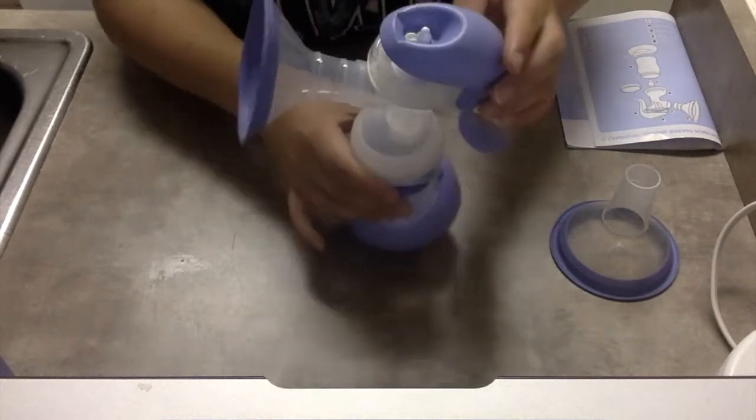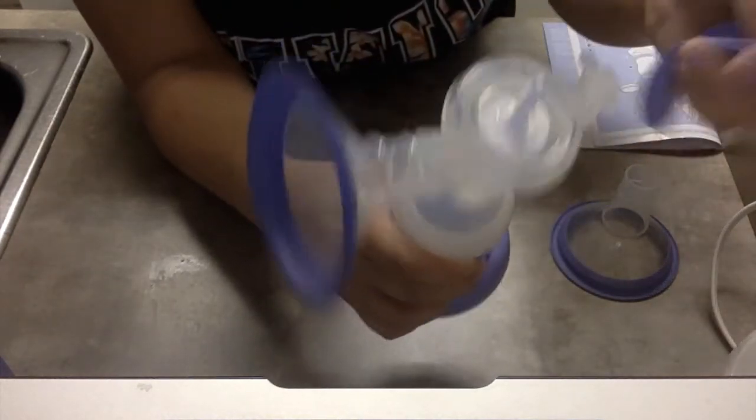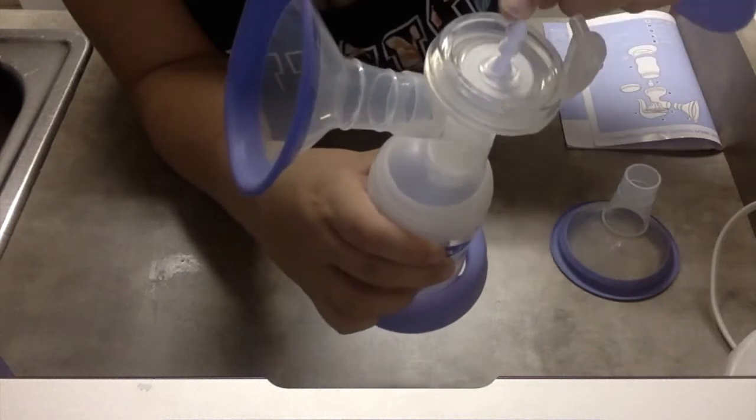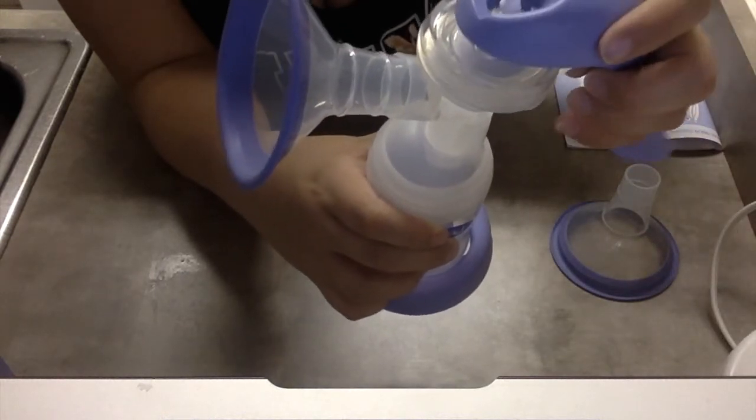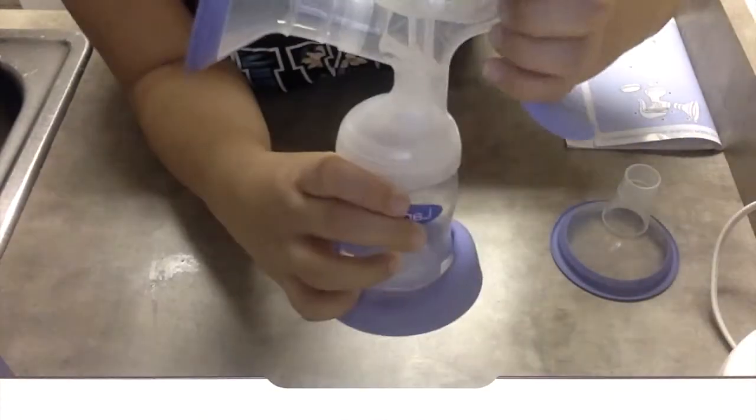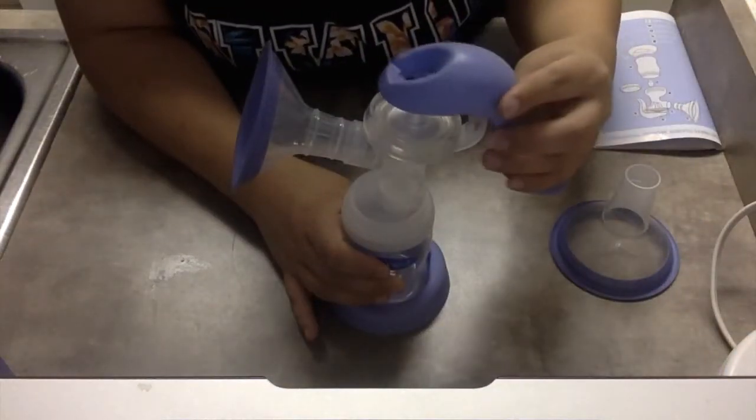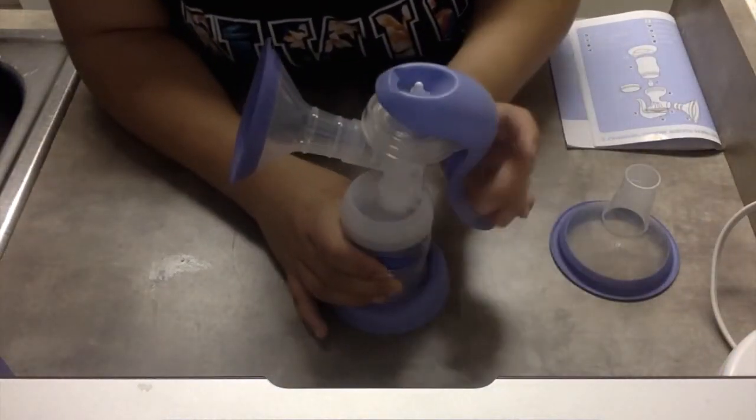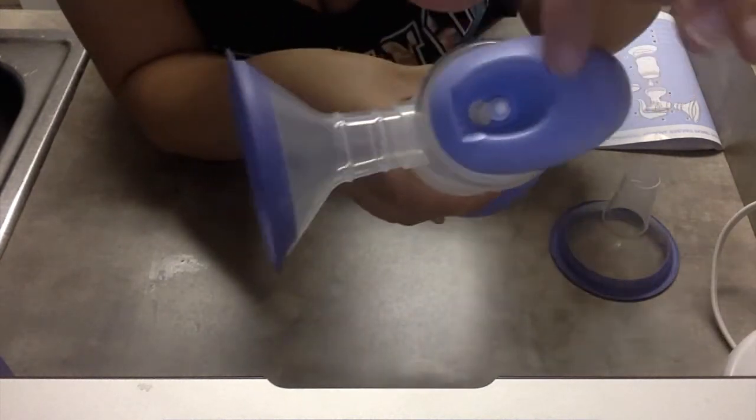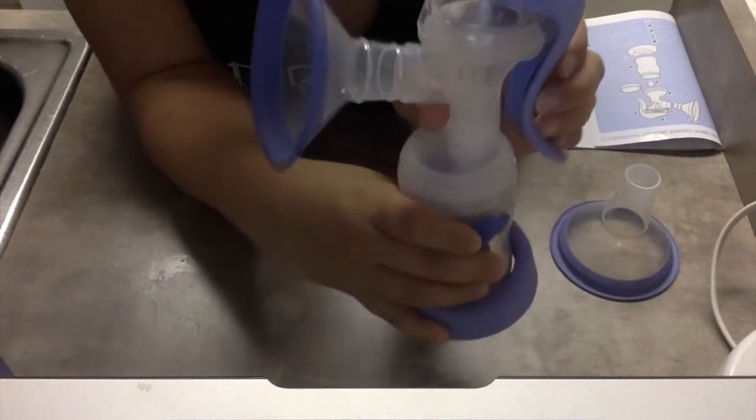Basically at the top, I'm going to take the handle off. There's two grooves right here. So when you first start, you want it to be on the first one, the higher one that's higher up. So you want it to be on the one that's higher up.